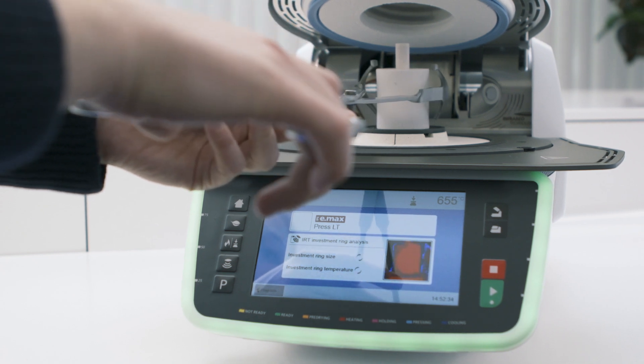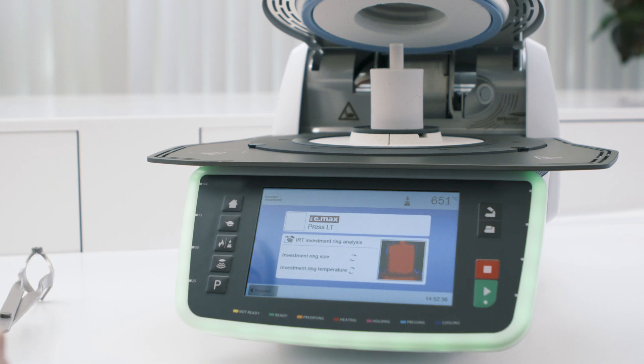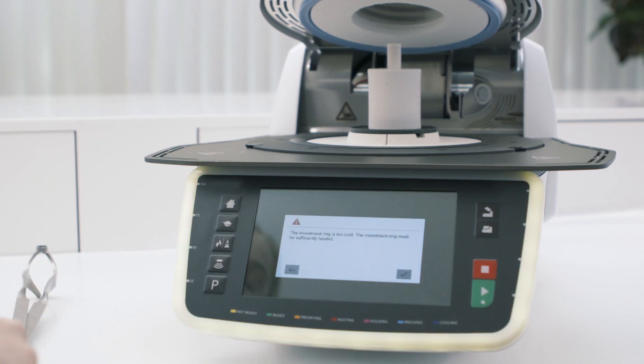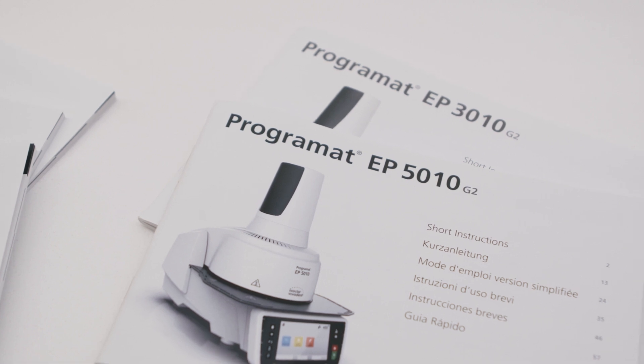For instance, if the investment ring is too cold, an error message will be displayed. For more information, please see the operating instructions.